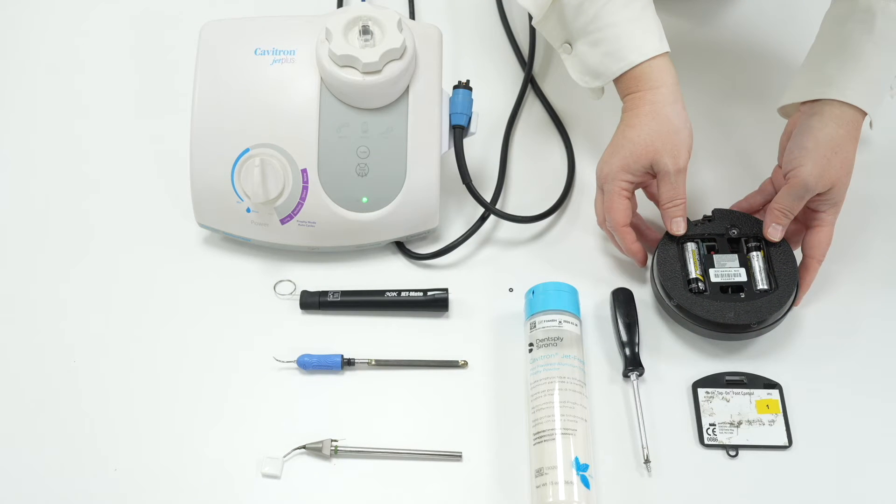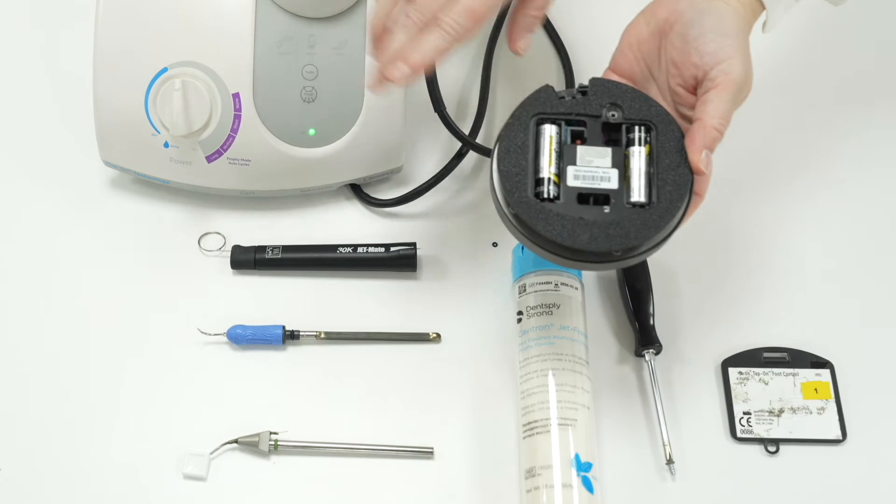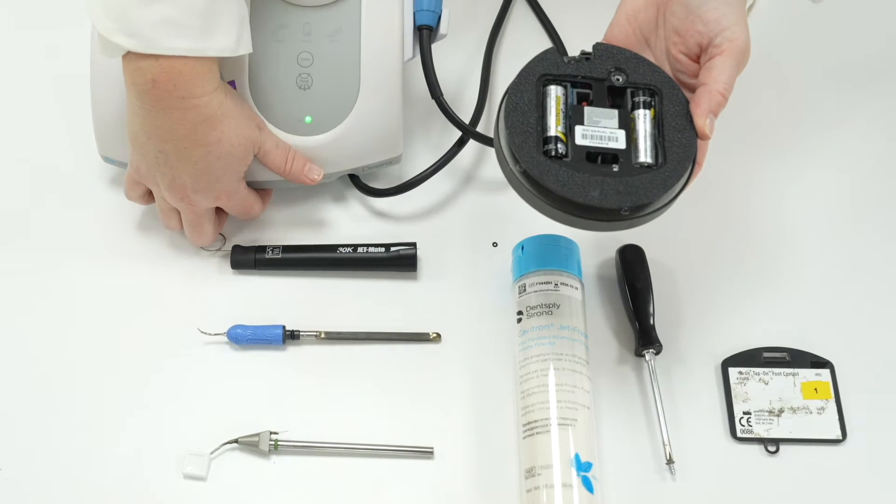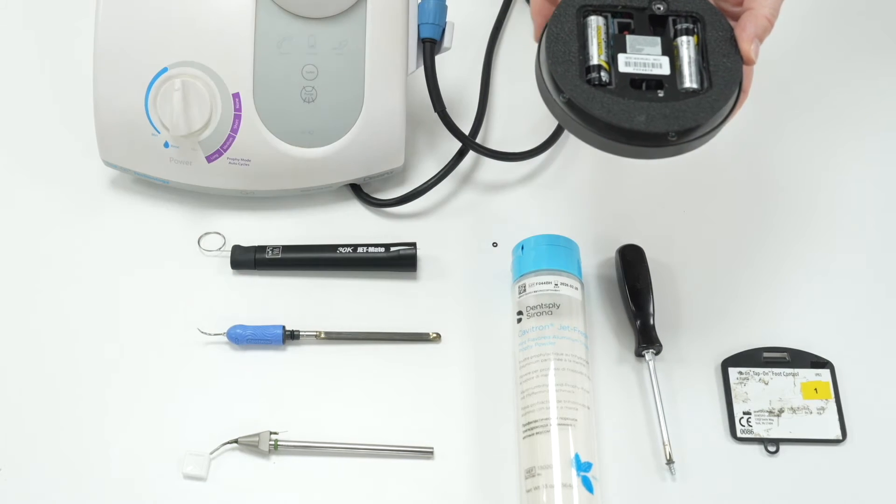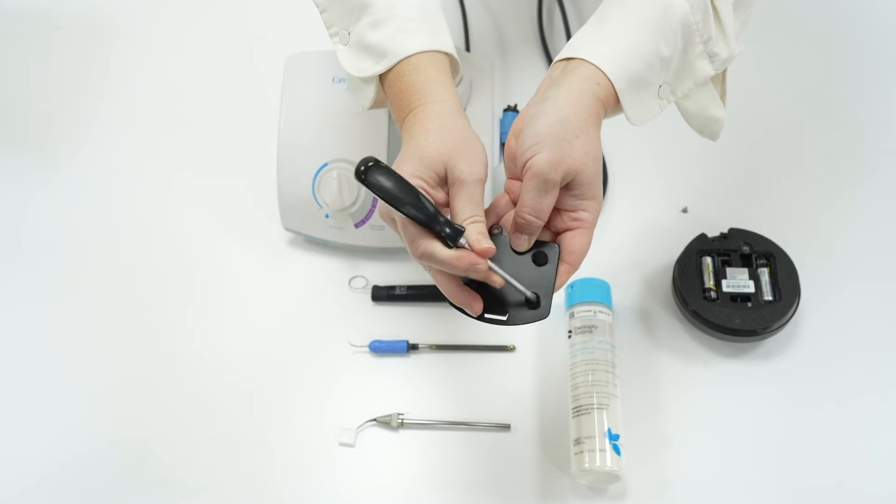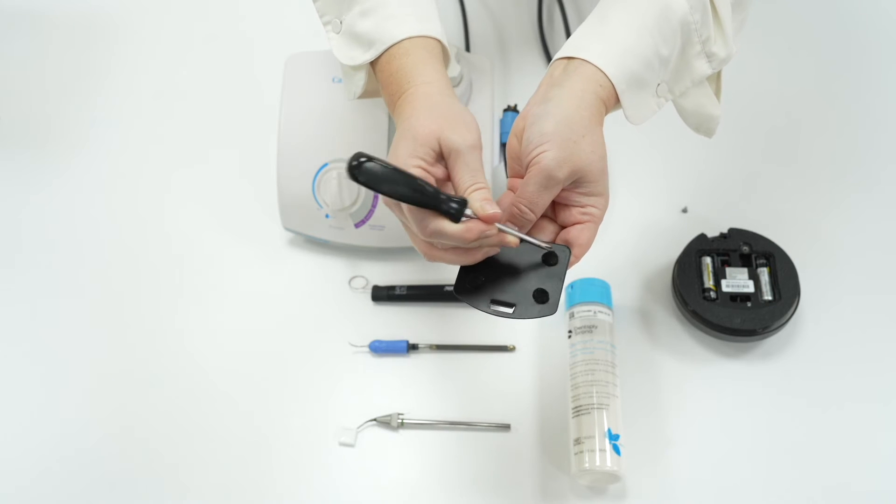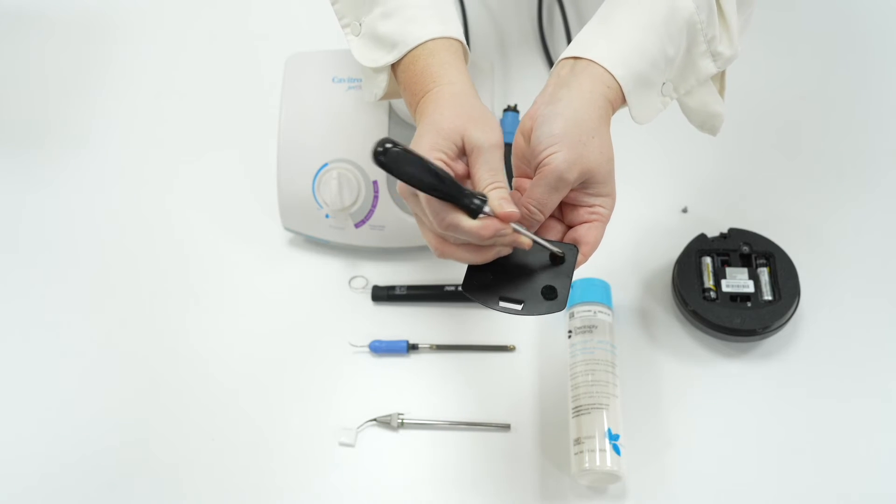Sometimes the foot pedal may lose Bluetooth connection to the Cavitron. To reconnect switch the Cavitron off and unscrew the base plate from the foot pedal. Once removed check the batteries are seated properly. As the foot pedal gets kicked around the felt wedges can get squished down.